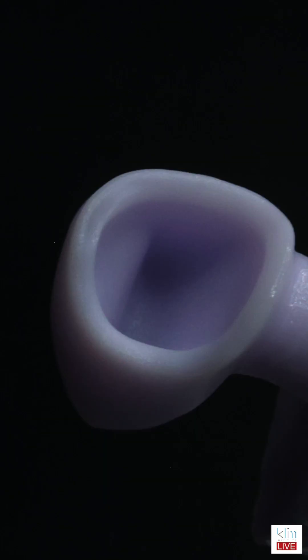With those two metrics, I do not see chipping — I don't see chipping on the margins. It's just a good mill. Now, the other thing you have to be aware of is that with the MCXL and the prime mill, you will get some slight over-mills internally in the way that it mills, whereas with the five-axis here, the PM7, I don't see any over-mill. But in most cases, that's not a game changer unless you're really going thin.